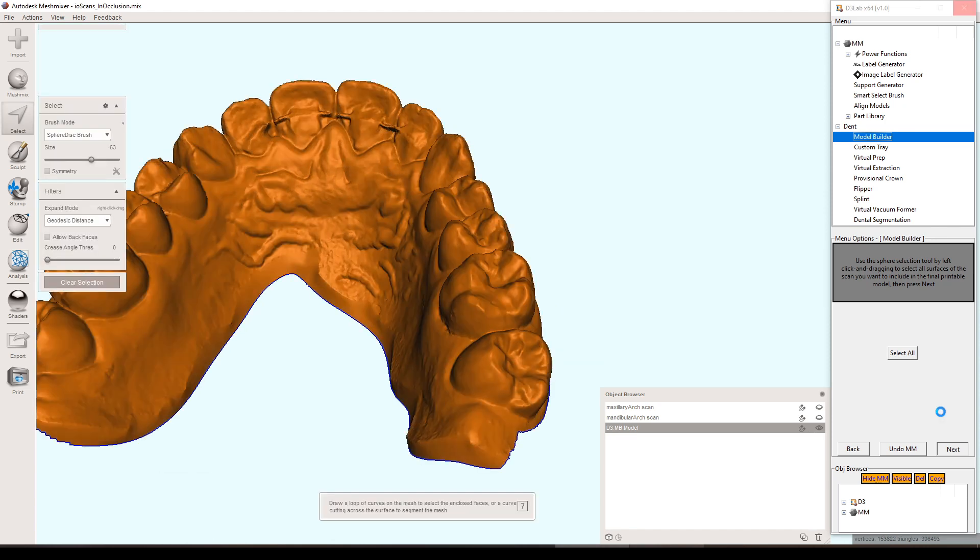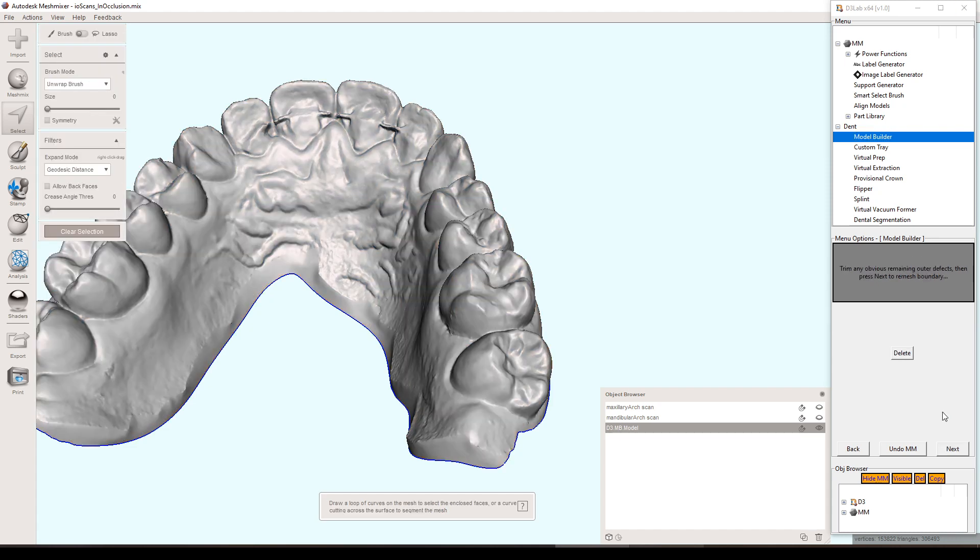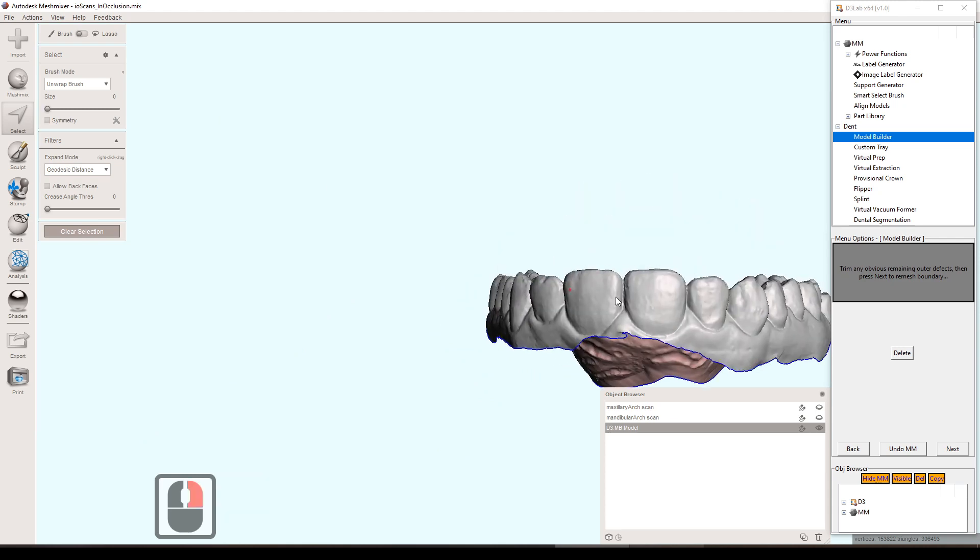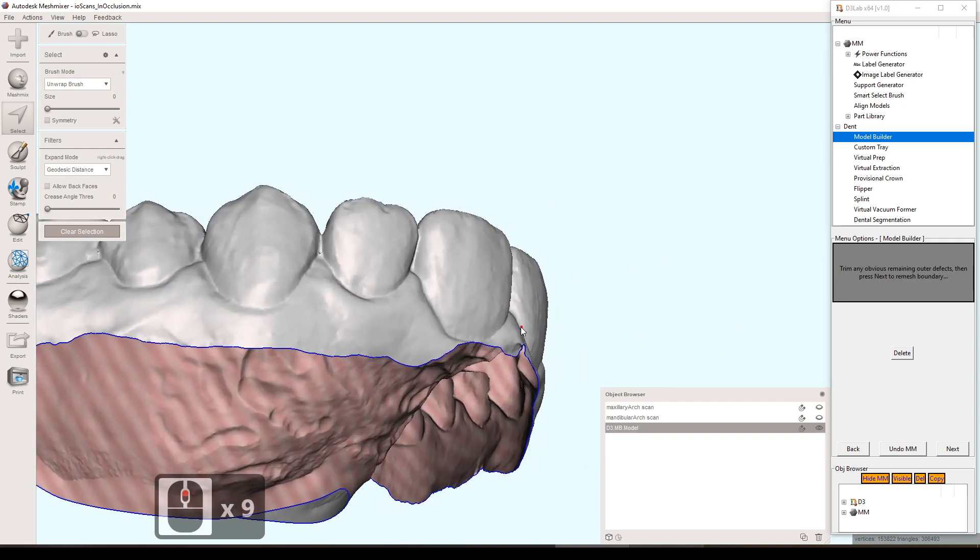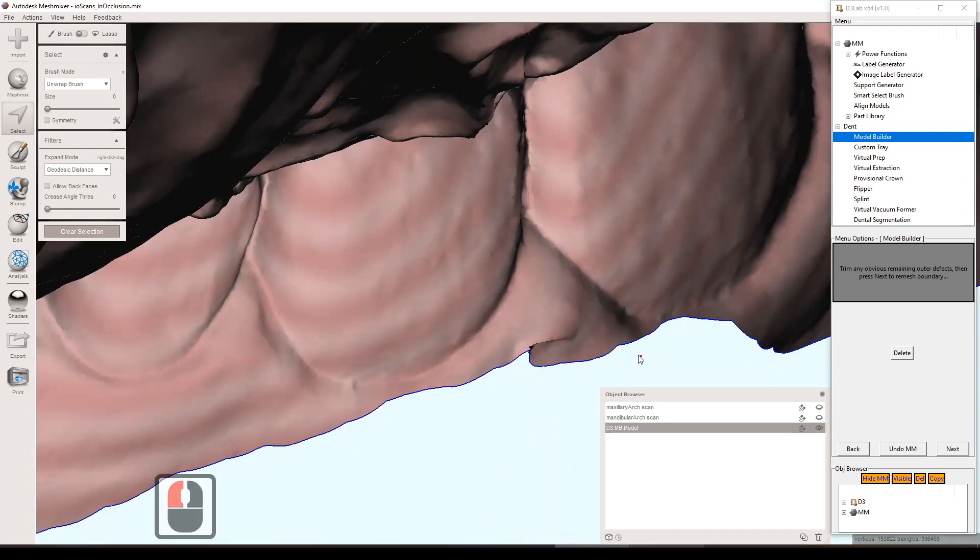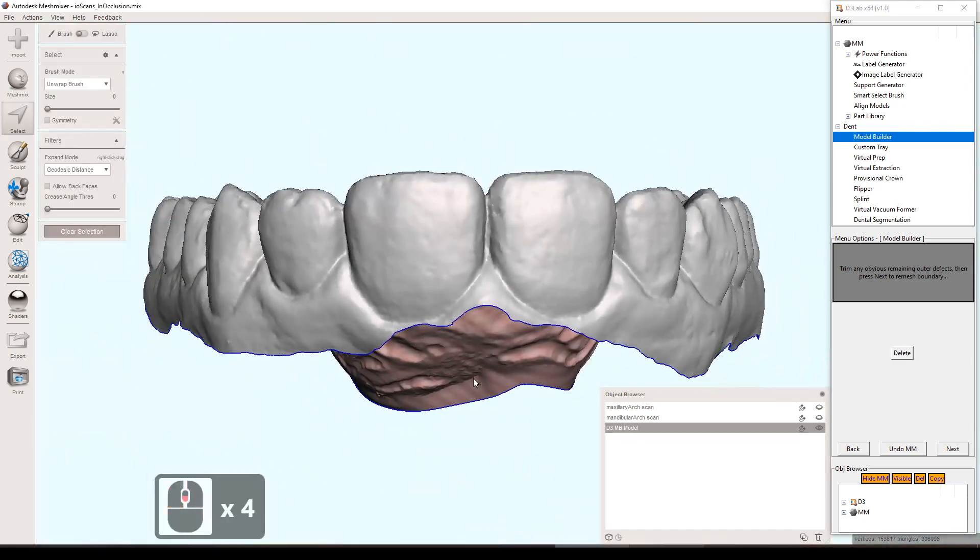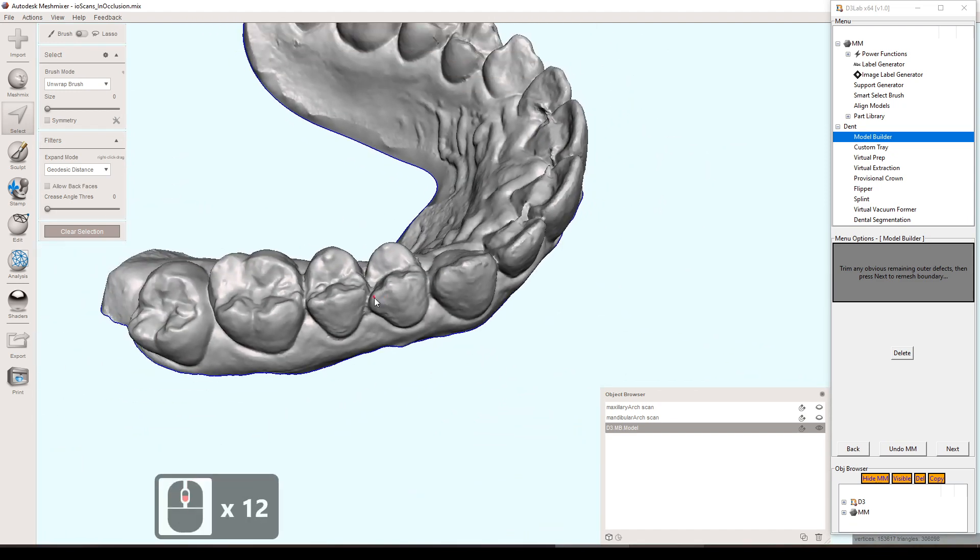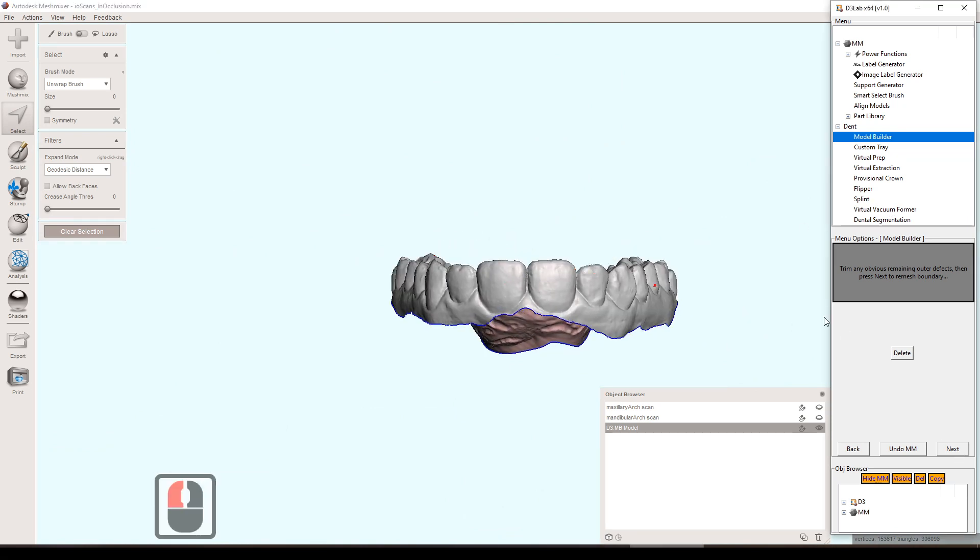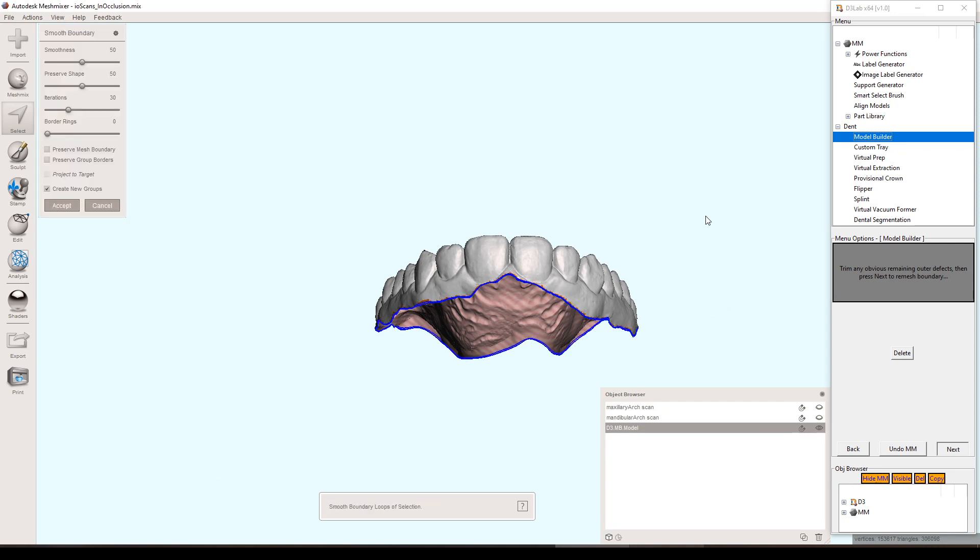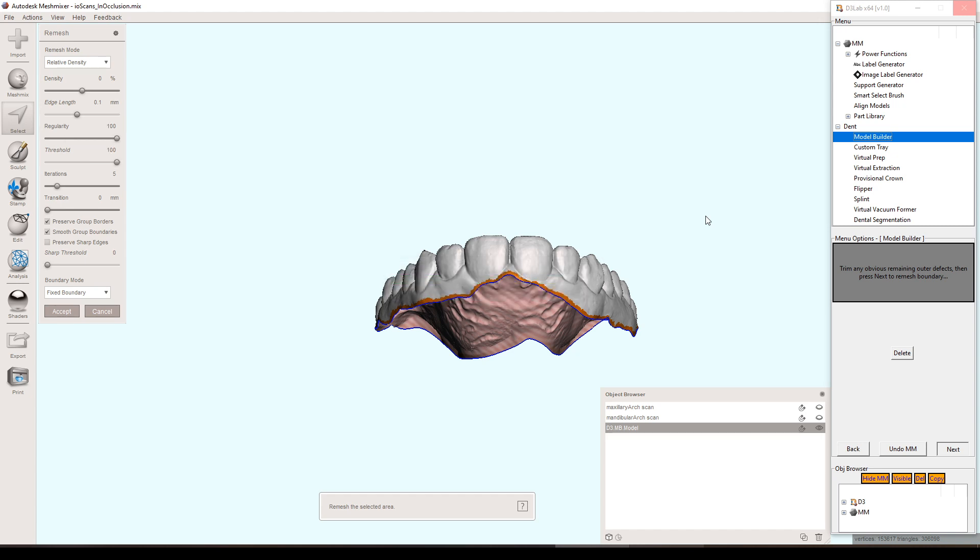At this point, I've just selected the main part of the model that I want to use in order to 3D print, which is almost everything except those weird little flares off to the side. I have many other videos showing how to go through difficult models and to base them properly. This one's not too bad. There is this little area where the frenum was that I think might give me problems. So I'm just selecting that and hitting delete. Maybe didn't have to do that, but just decided to anyway, just to be safe. The reason I did it from the inside out is because I would get worried that by selecting that it would select everything on the palette as well behind it, because it kind of just selects everything in that little red selection that you have. So I did it from the inside out just to make sure I did the exterior portion there. Once I felt like I had everything looking pretty decent on the outside edge of the model, just hit next.